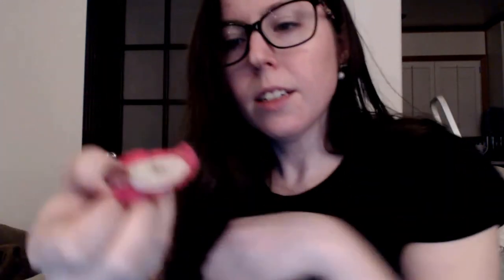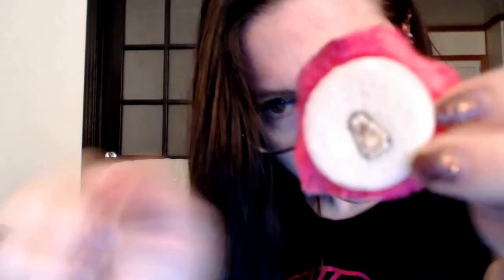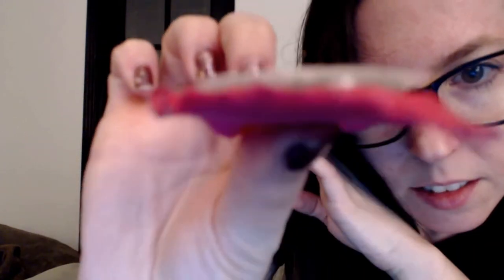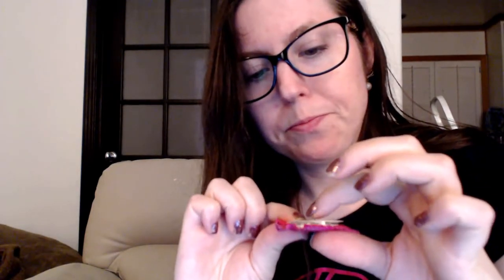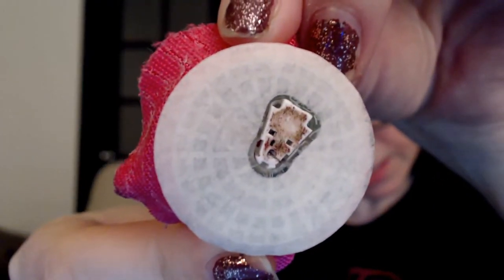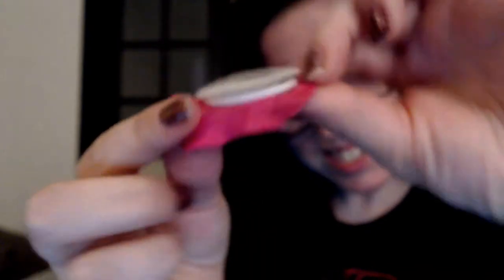So that's what it looks like. Here's the inside of the sensor — if my camera will focus on it — I guess that's the little filament, the little thing that sticks in. It's a little bit firm. So that's the inside of the sensor, you can see my blood I guess. It stuck on pretty well. My skin doesn't seem too irritated, so I'll go ahead and put on the new one.